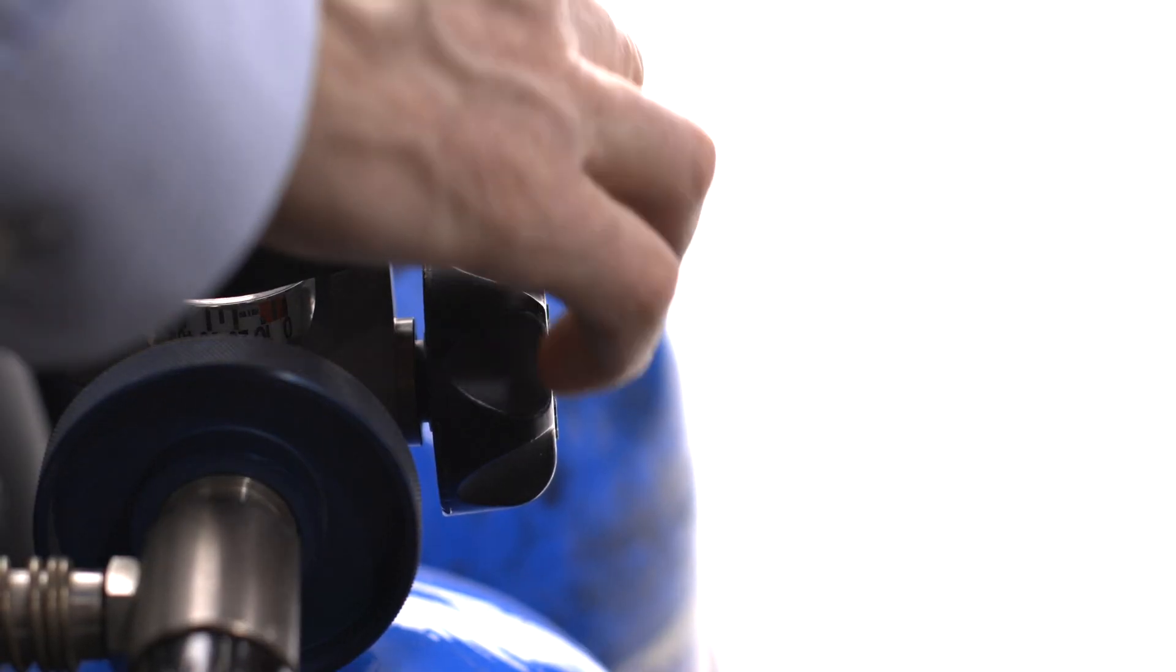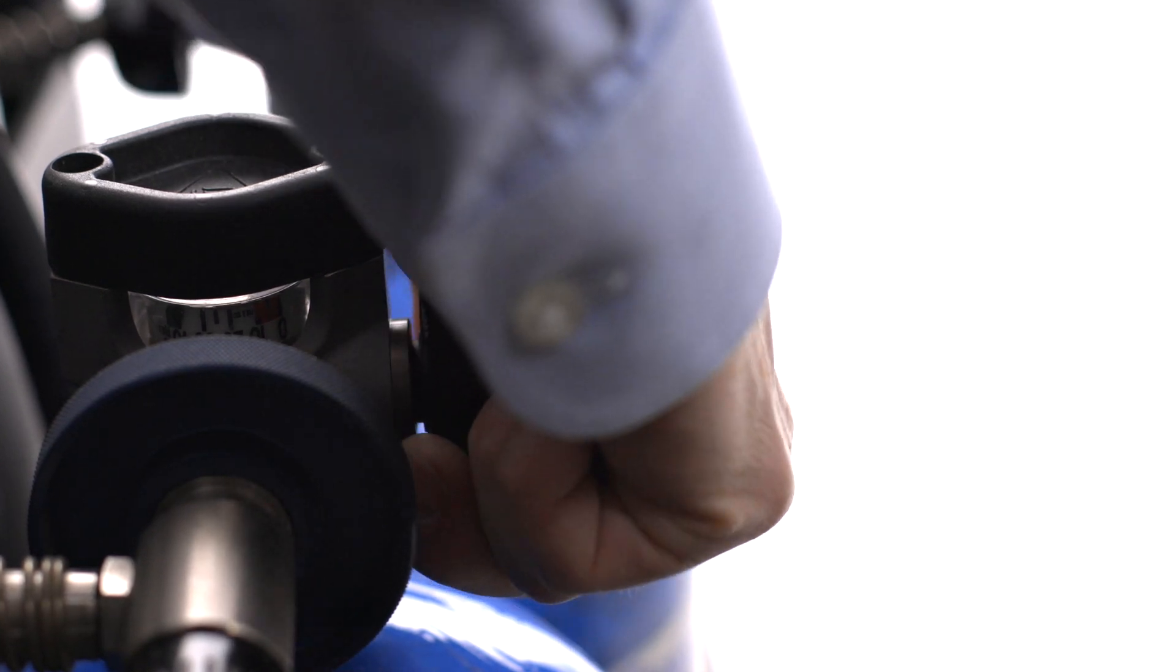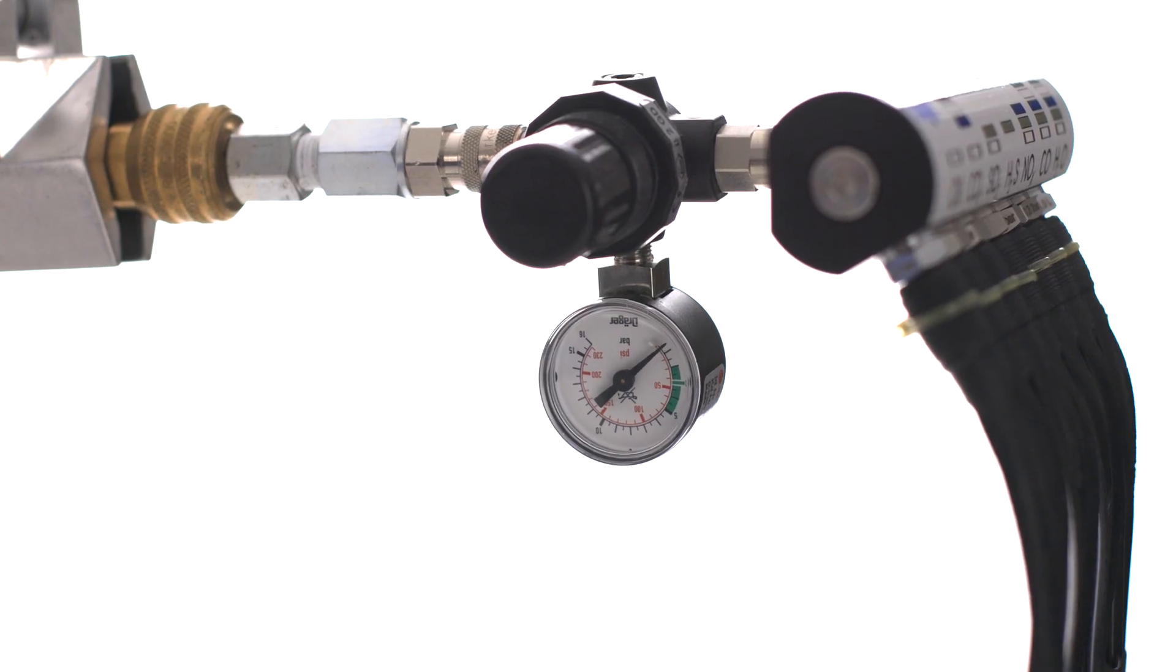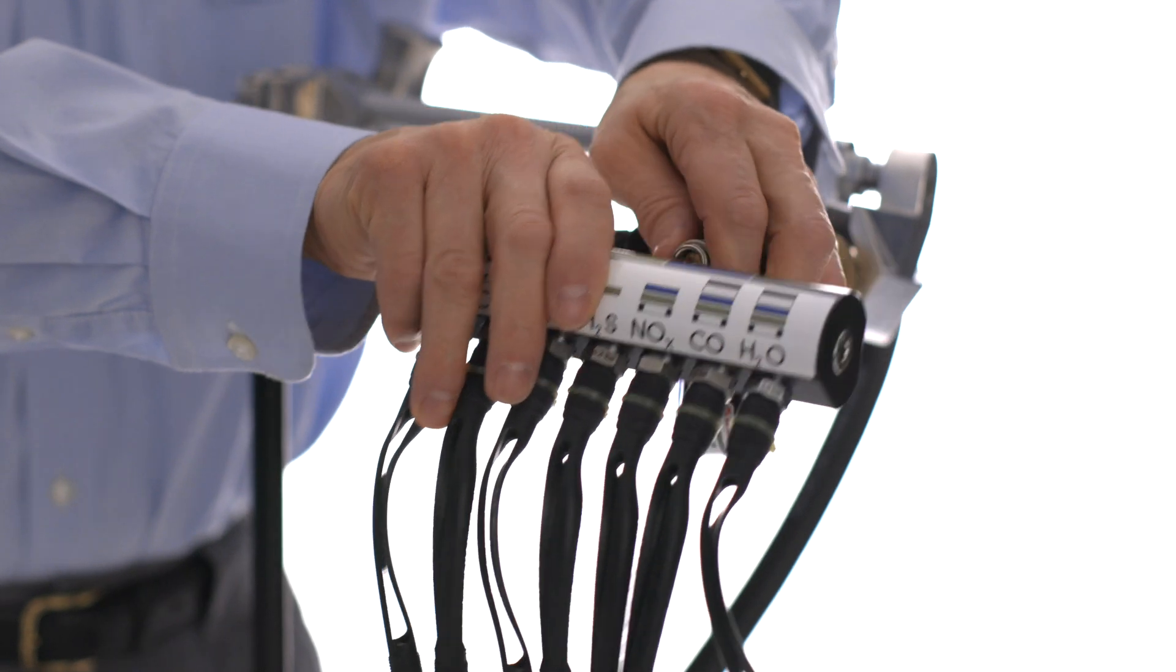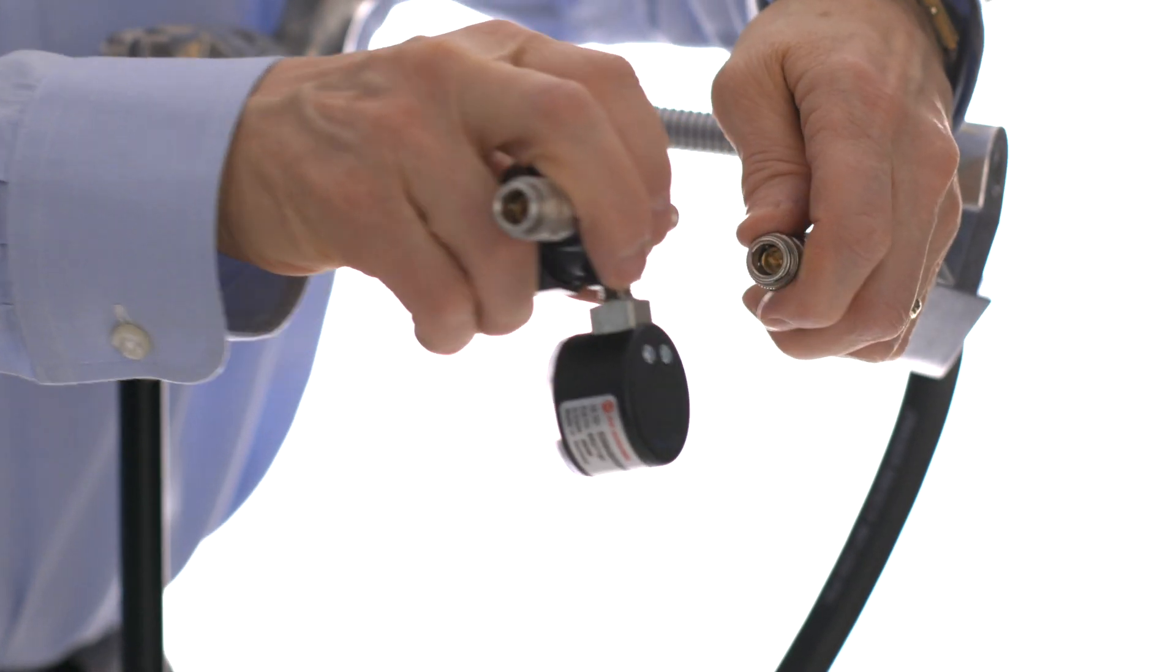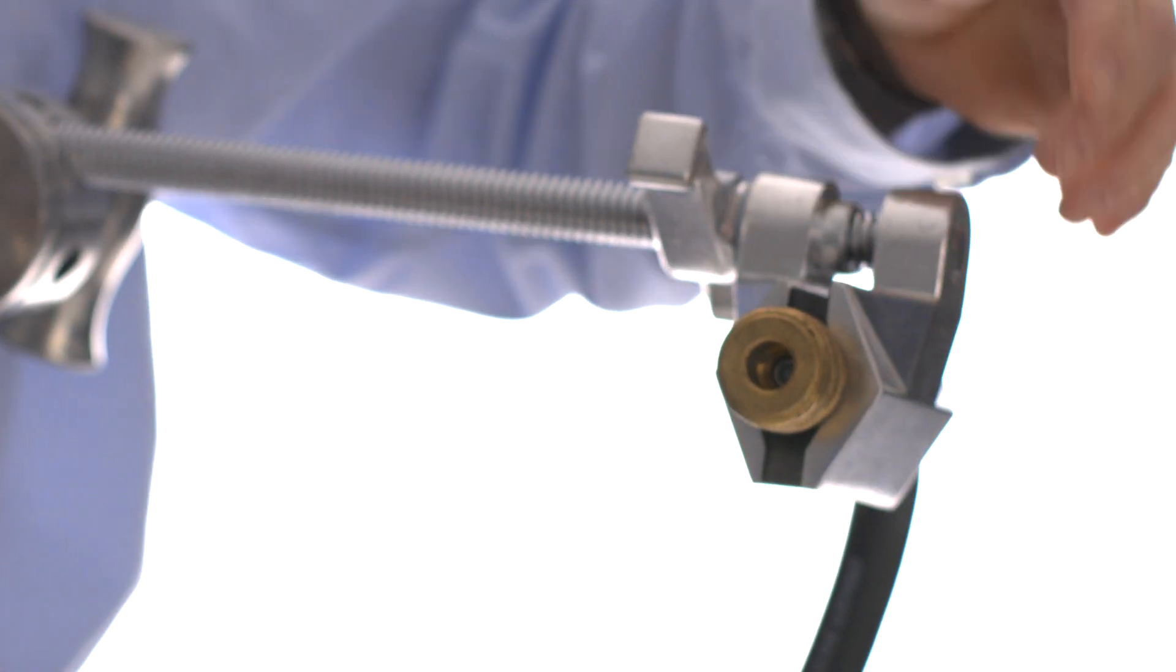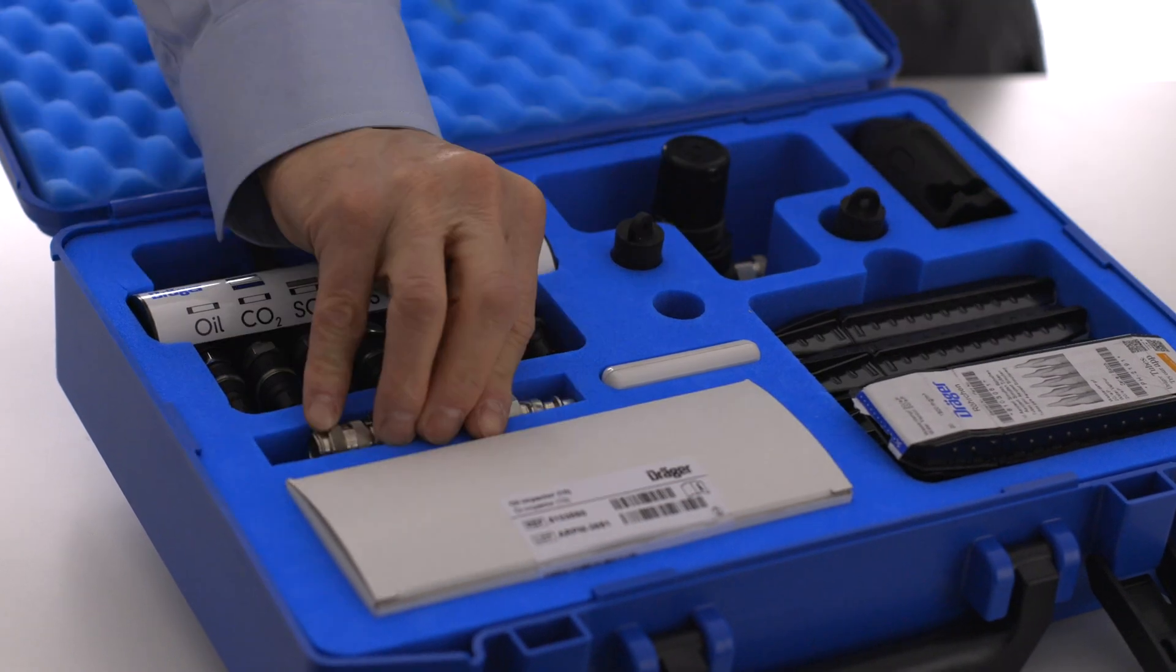This concludes the operational overview of the Aerotest Multitest Med International. If you are using bottled gas, you can turn off the cylinder valve. When the pressure bleeds down to zero, disconnect the measuring device and remove each part, storing them back in the case until next use.